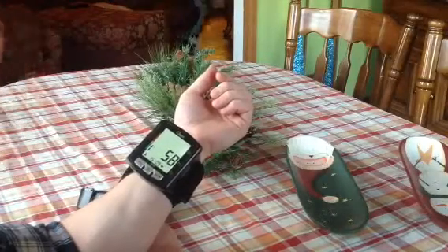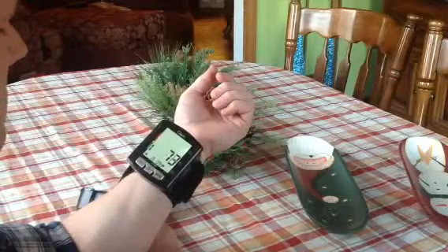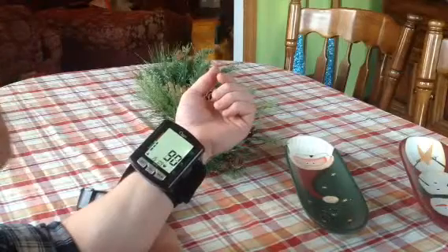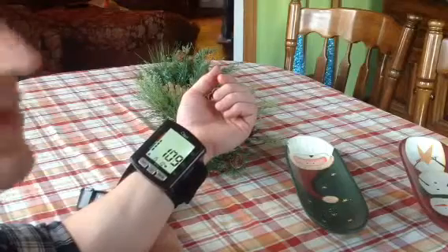It's super comfortable. And it's nice that they tell you exactly where to put your arm. If you're wrong, they'll tell you until you correct it.